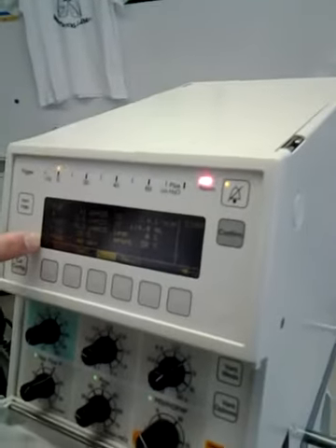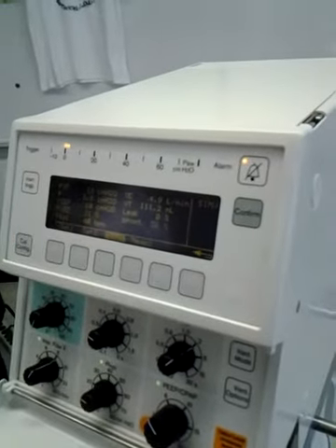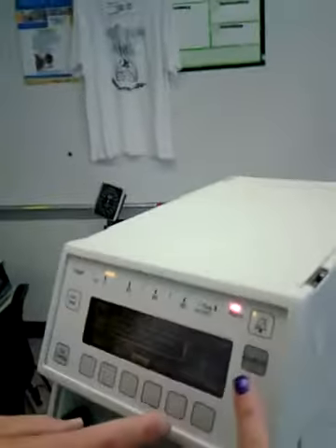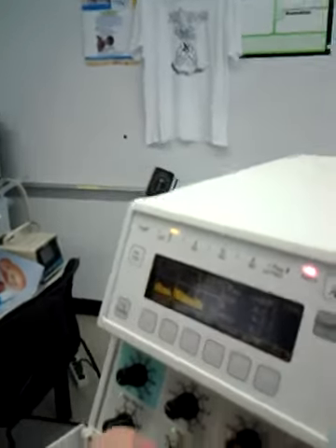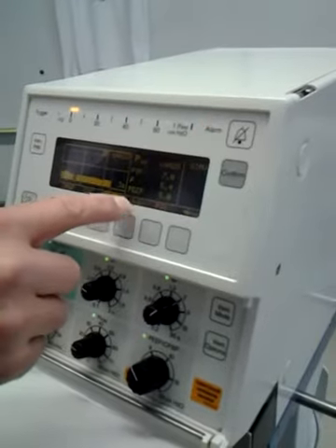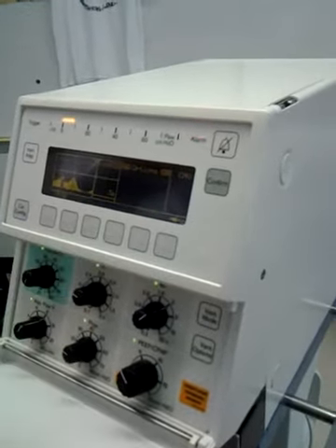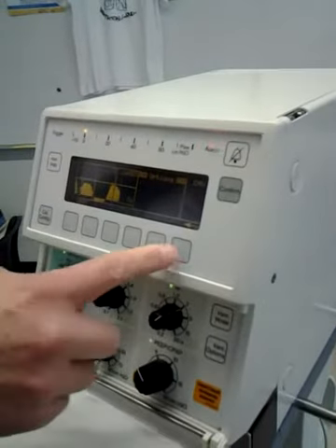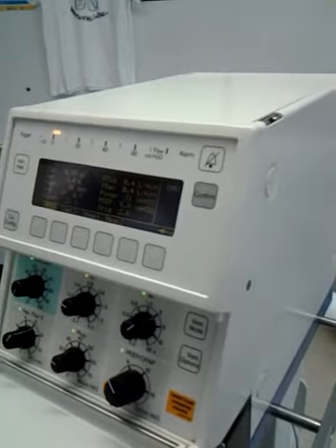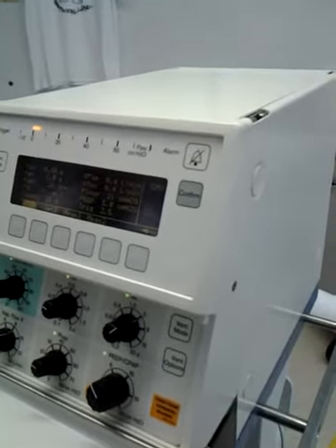Okay. So your total rate is 40. This is 20, whatever you're doing. SIMV. Right. How do you change the modes? Down here, vent mode options, CPAP, CMV, SIMV, pressure support. So if you go to CMV, you have to select it, and get out, then go to your list. So now this should give 26, should do 26 breaths.